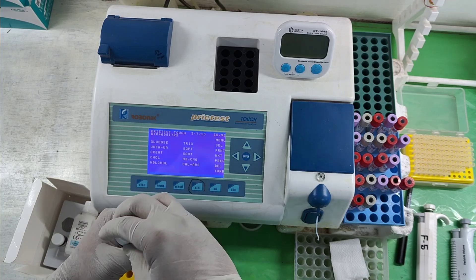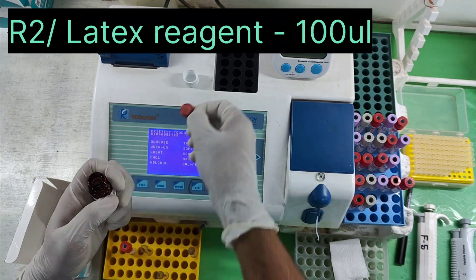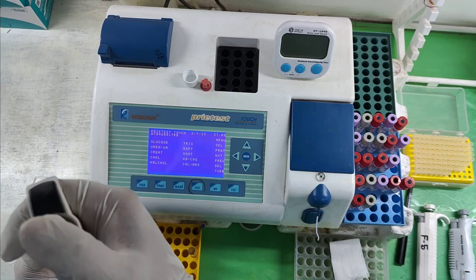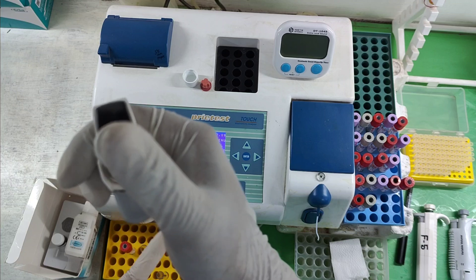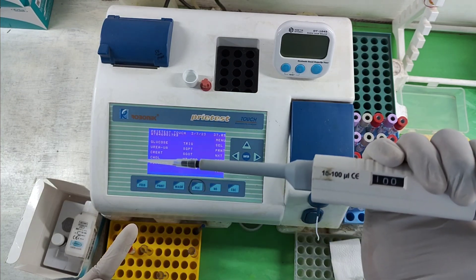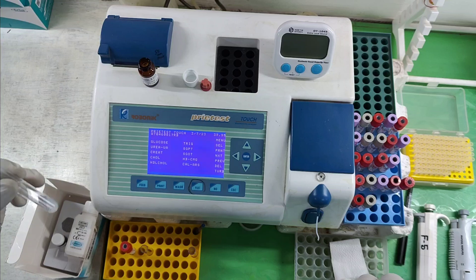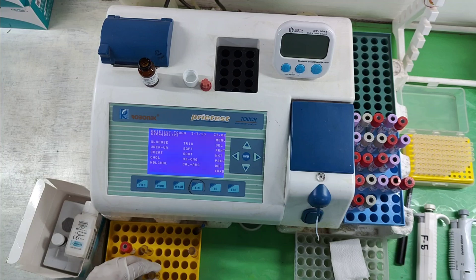Transfer 100 microlitres of Reagent 2 into this vial. The pipette should be in a vertical position and there should be no air bubble, as you can easily see. Reagent 1 and Reagent 2 are now mixed — this is the working reagent, now prepared.